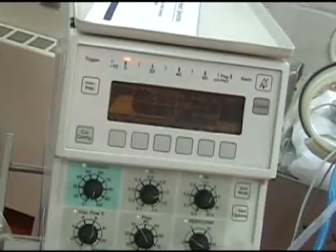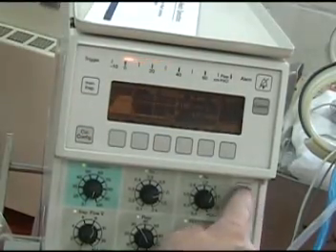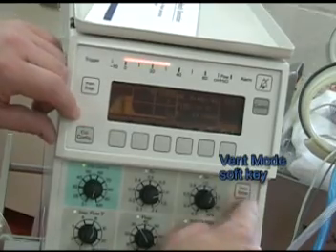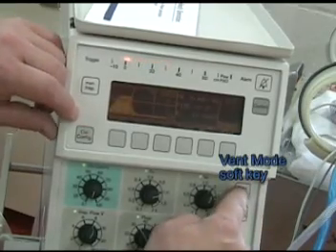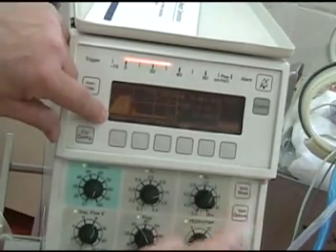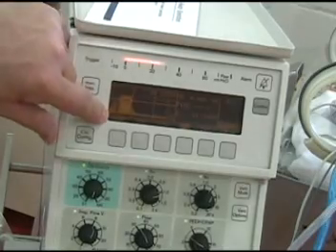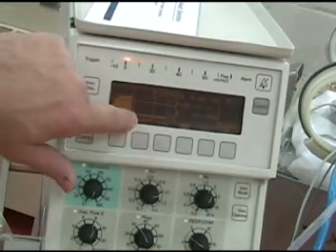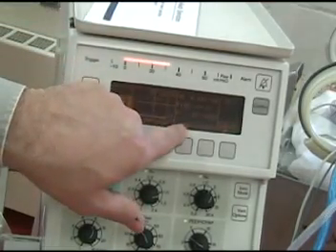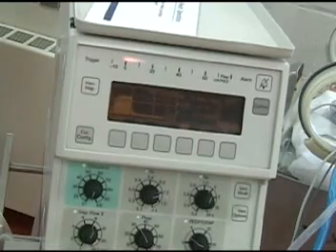Here we have the vent mode, and when we press this vent mode, watch what happens down here. We have CPAP, CMV, SIMV, Assist Control, and Pressure Support.